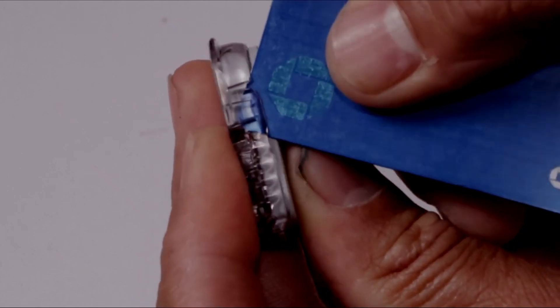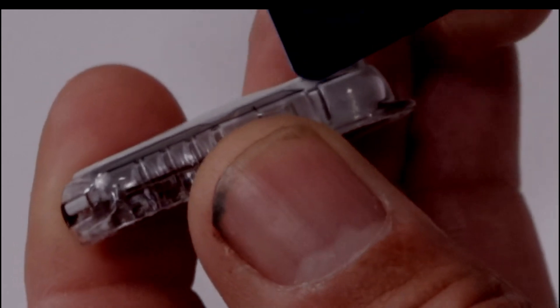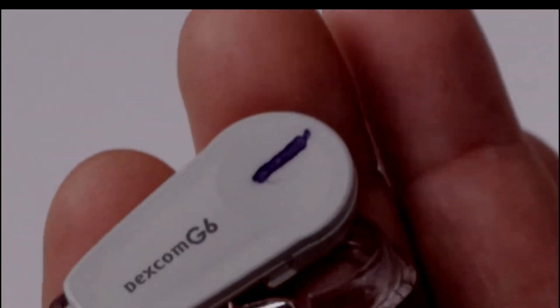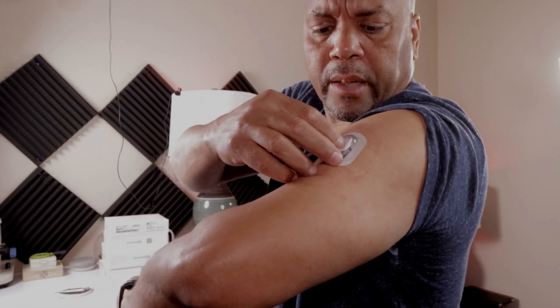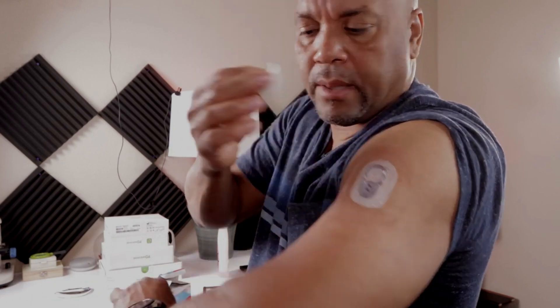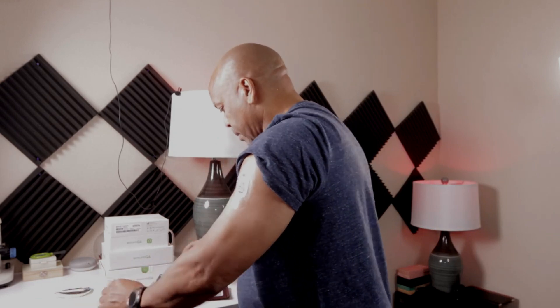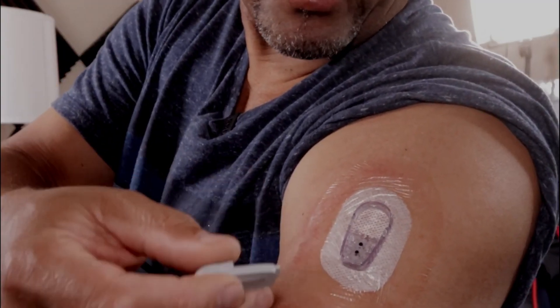That's where you want to get in and just unlock it so it pops up. Do the same thing on this side — just find the little groove on the side and push it in and it comes out. After you remove it, let it sit for five minutes, clean it out, clean the contact area in there, clean the other side, and let it sit for a while.